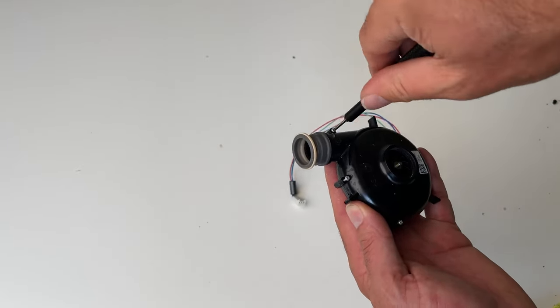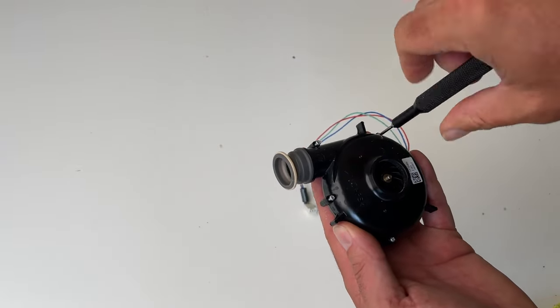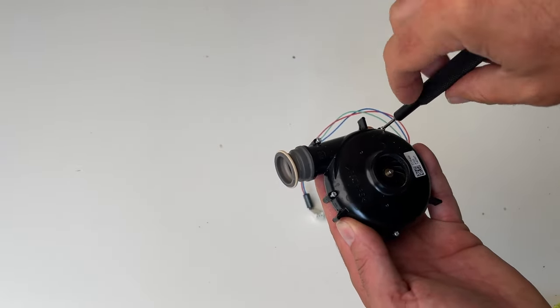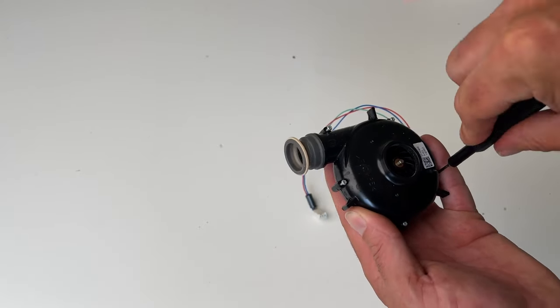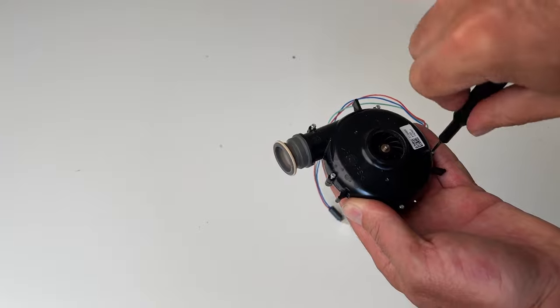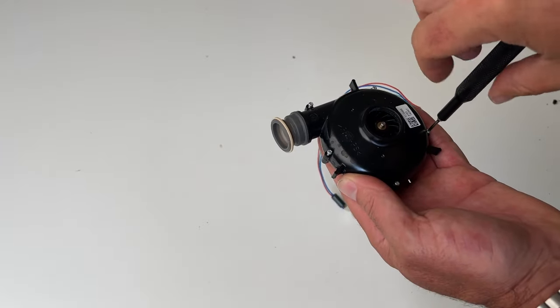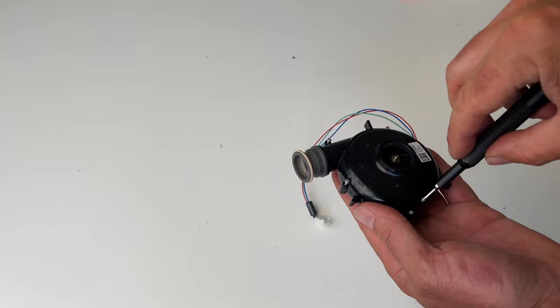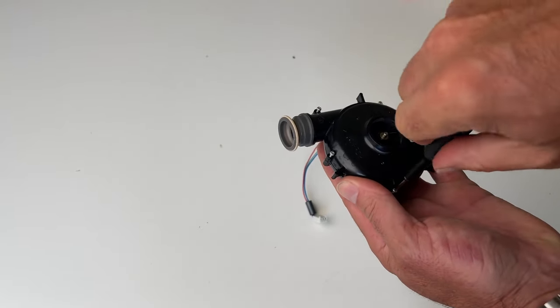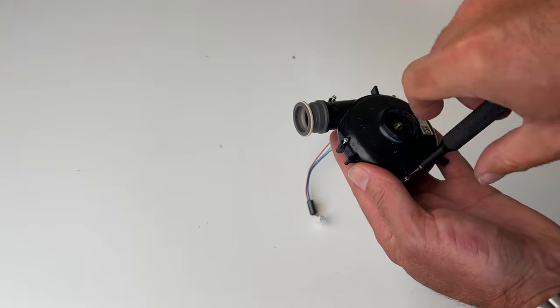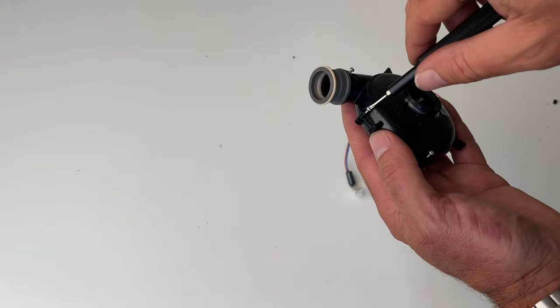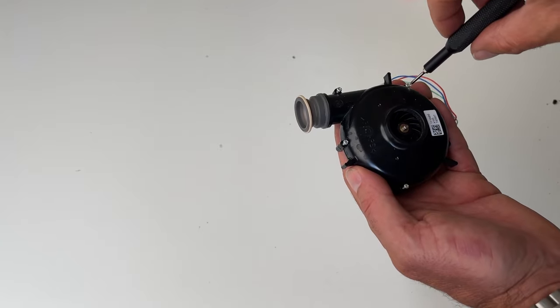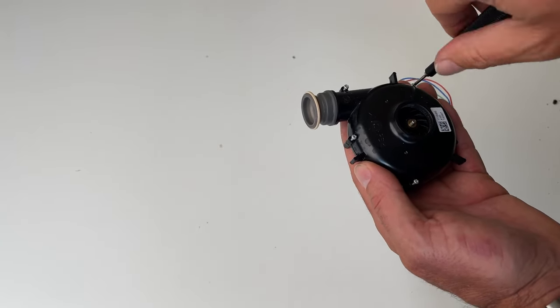This is one of the things I actually like about Philips, is that you can take out the turbine, open it up, and clean it, whereas the ResMed turbines are completely sealed. You can't really get access to the fans. You can try doing a little bit of air compression, but it's quite challenging either way. Some of you might have seen that S9 video I did a couple of days back showing how much dirt and debris and dust was in that S9 turbine.